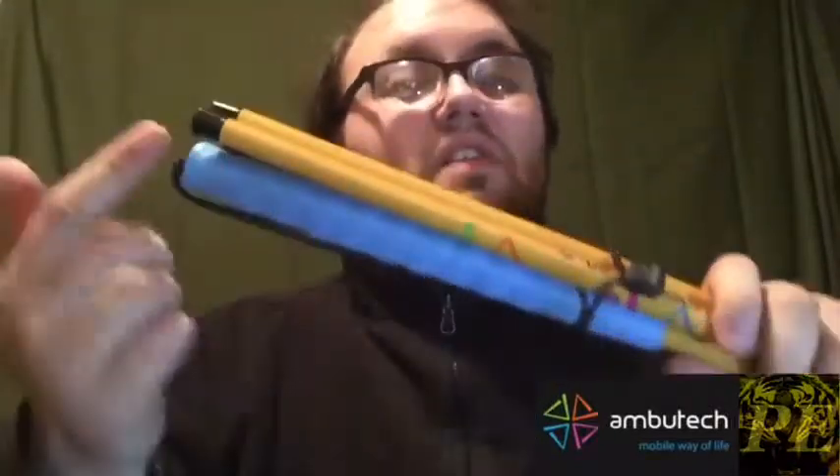There's a rollerball tip, pencil tip, marshmallow, and different shapes. The grip can be different colors while still utilizing the white and red shaft. This is what's called a highlight cane by AmbuTech — you change only the grip and the shield where the tip is, while everything else stays red and white, so it can still be used as a mobility aid. But when you start changing the main shaft colors, that's when it can no longer be used as a mobility aid.